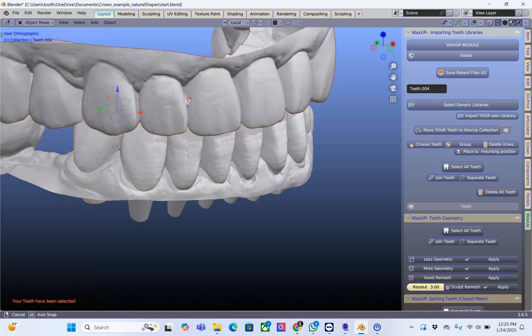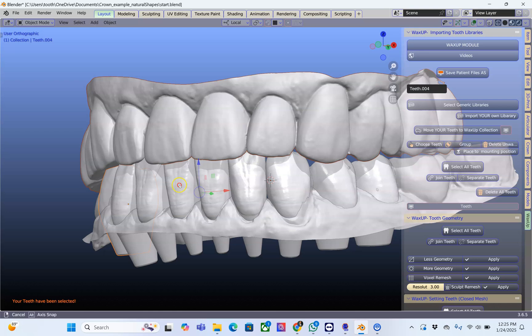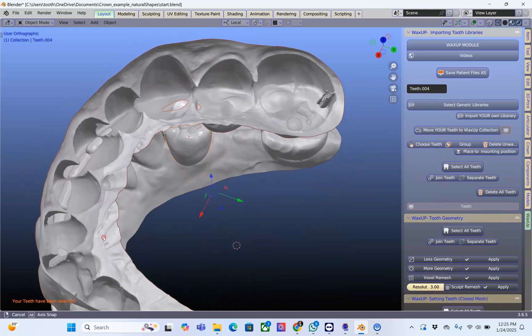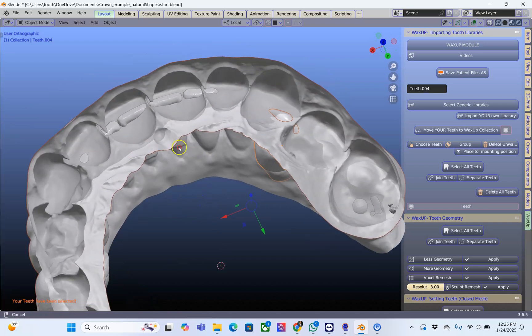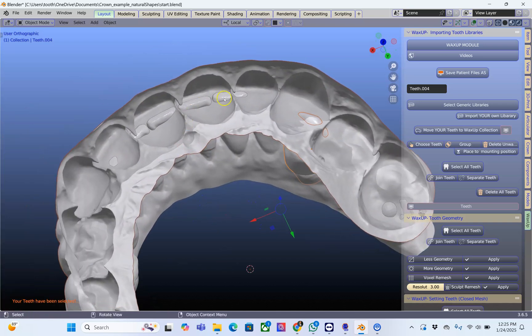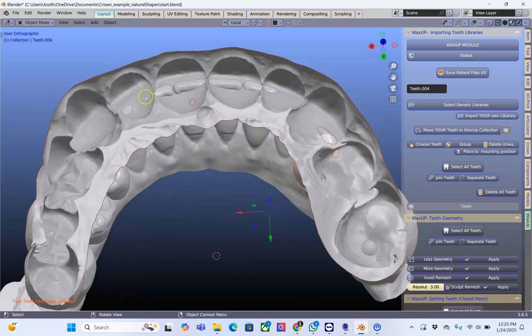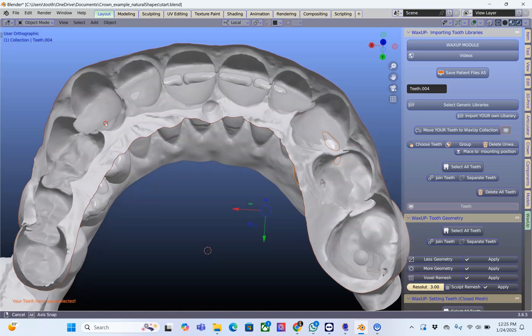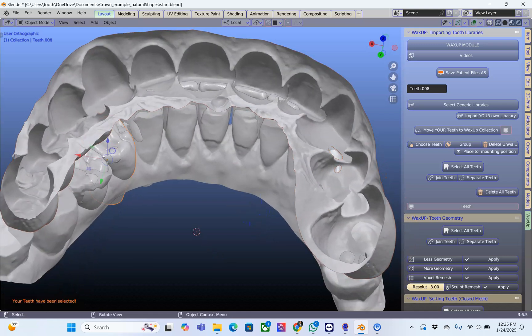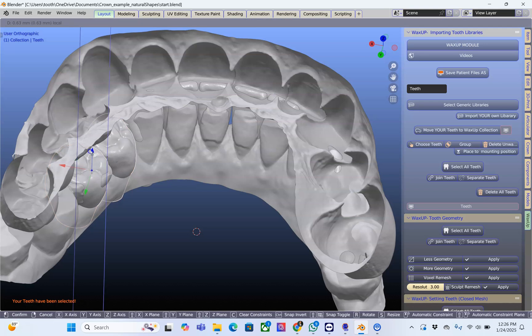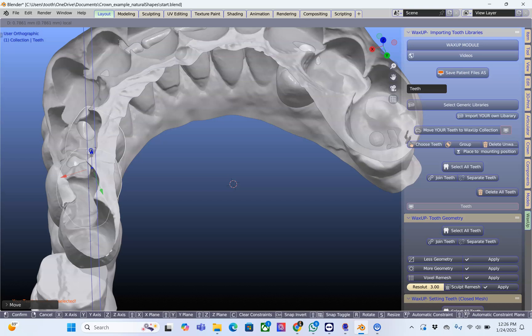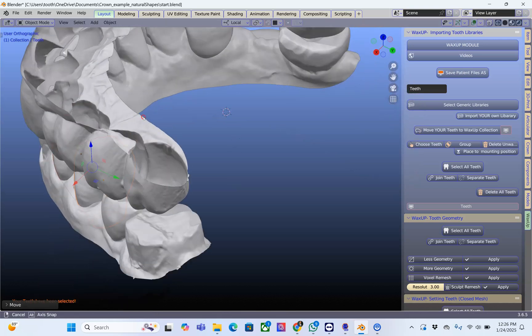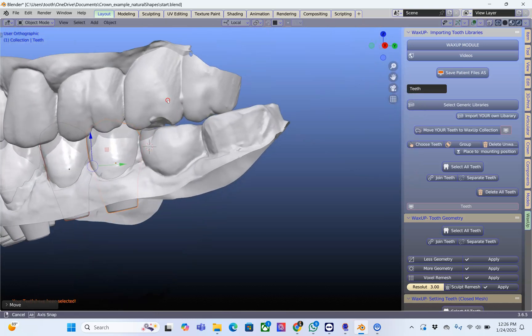Alt H to unhide. Now just briefly have a look at how they are occluding. I can see that over here and on the inside as well — these are all intersecting and here we have zero intersections. It is good just to move them up and make sure that we've got a little bit coming through so that we can grind them off.